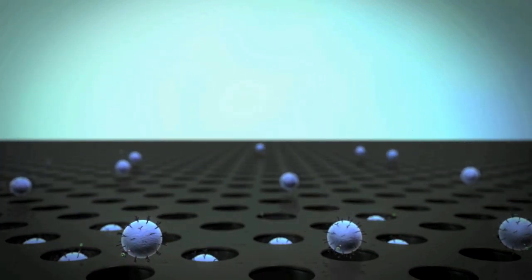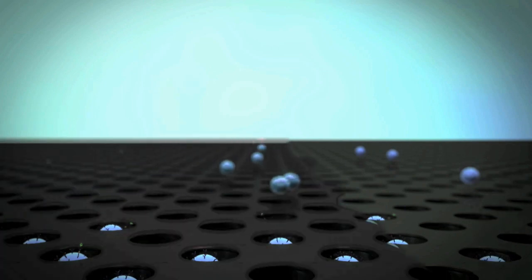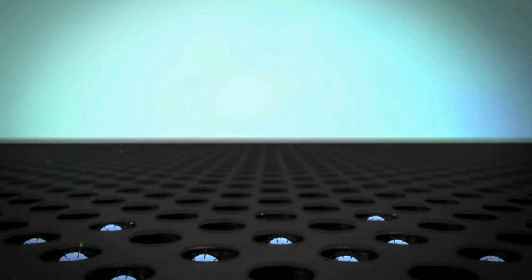After the beads have settled, an oil solution is added to seal each well and to remove the excess beads.